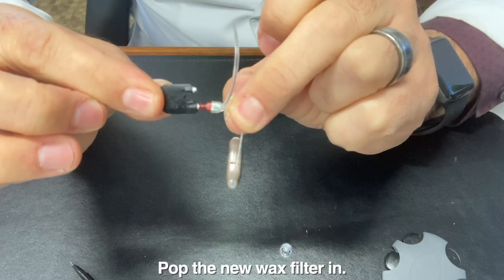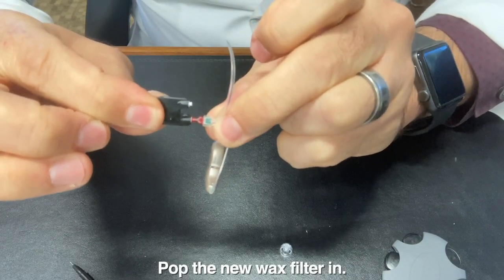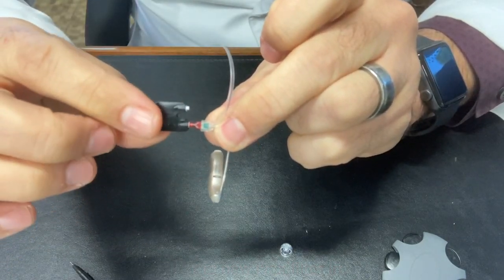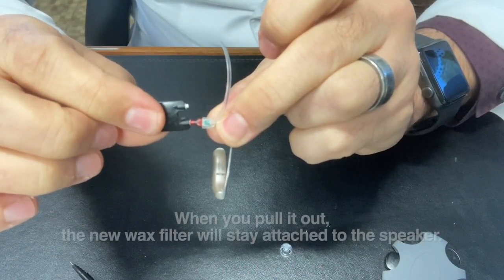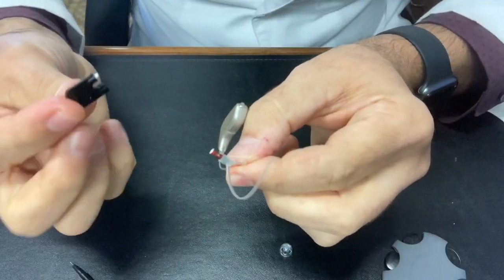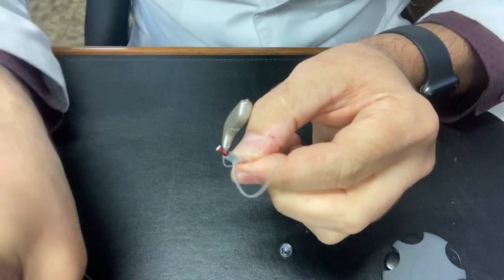And you just want to pop the new one in. So we're going to stick that right in there. It'll hold if you get it in correctly. Now, when we pull it out, it releases the new wax filter. You can throw this away.